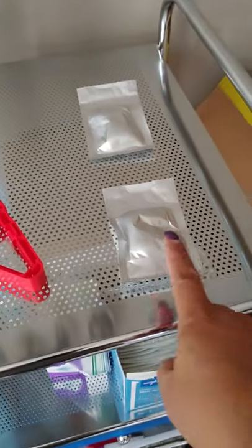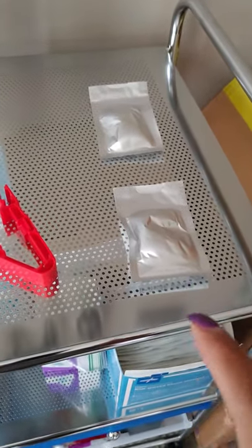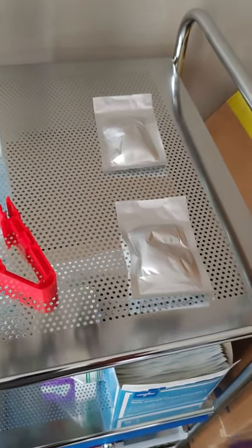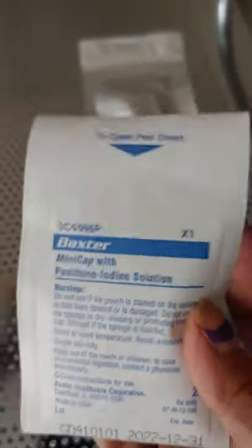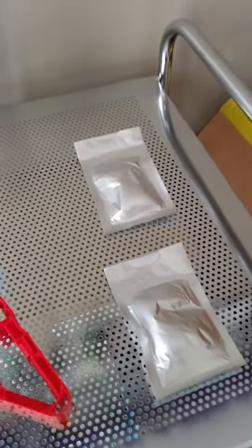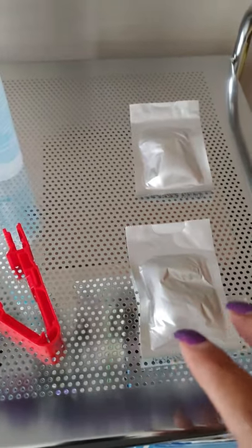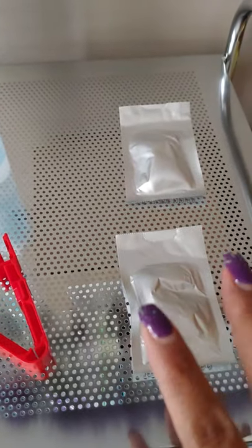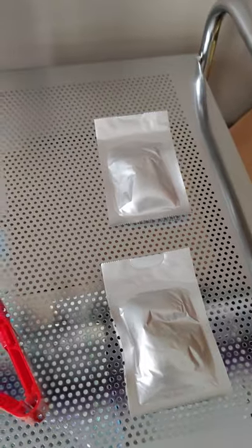While I'm drying it, I hold it in my hand and open the cap package at the same time. Inside here is your cap. The cap that goes onto your catheter has to have a red ink in there — iodine. It has to have the iodine in there, and you have to see it. I have had caps show up without iodine, and I'm not using those because iodine is a killer to bacteria. So definitely check to make sure it's there. Then in five seconds or less, you're disconnecting and putting your cap on. It's stressful in the beginning, but after a while you get used to it.